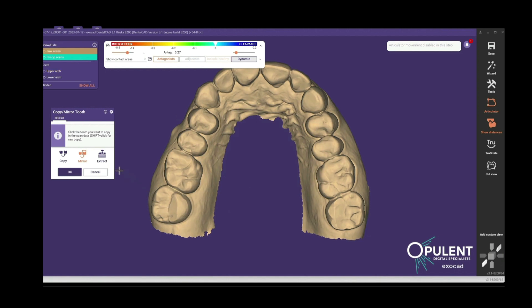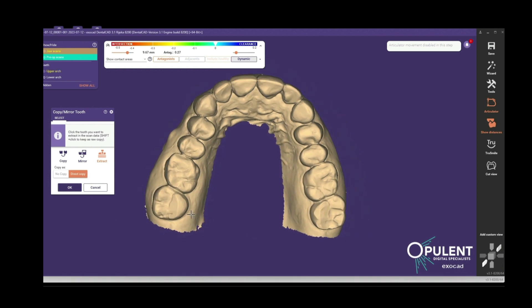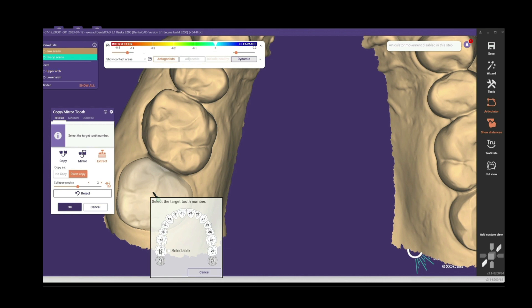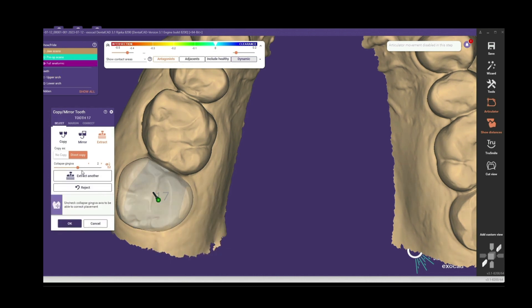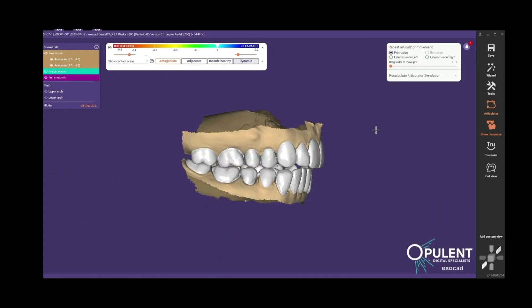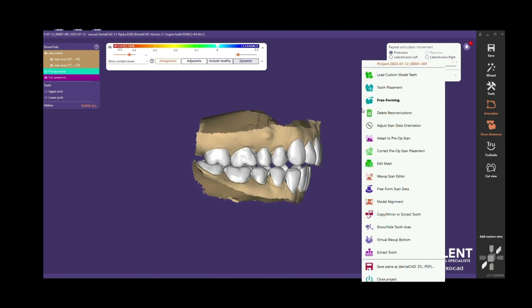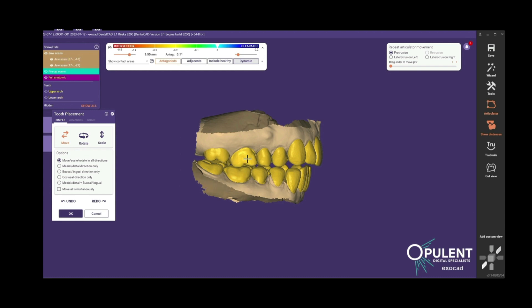What you're going to do next is segment the teeth — we're going to do an extraction and copy it. Go ahead and extract the tooth and do a direct copy. That takes a few seconds per tooth, and you just go ahead and complete that for all the teeth so you have a complete set of models with all segmented teeth. There we have the model, and now you're going to go to tooth placement. Here we're going to be intruding the teeth digitally — I've already done calculations about the approximate amount of intrusion needed to get our anterior coupling.